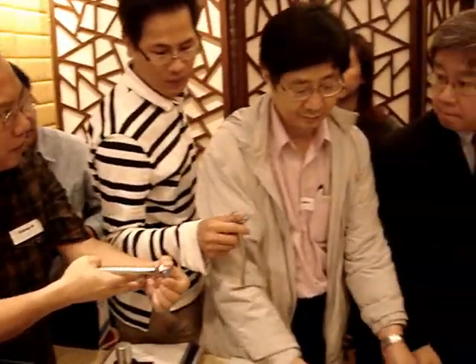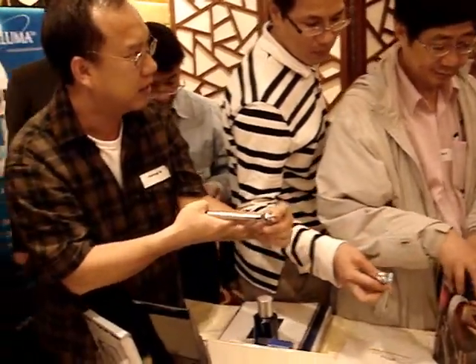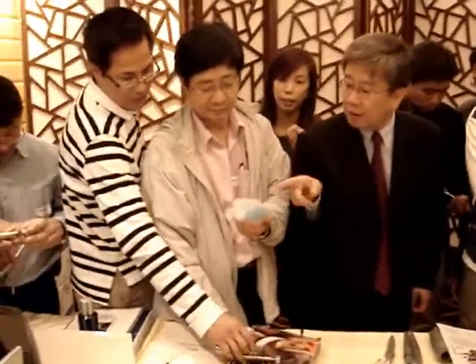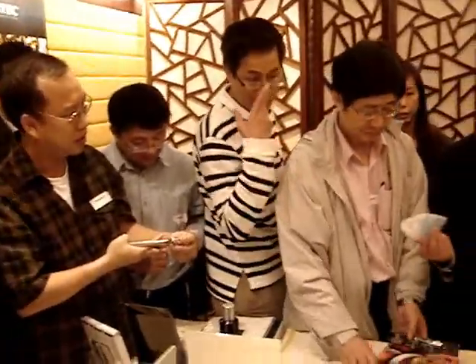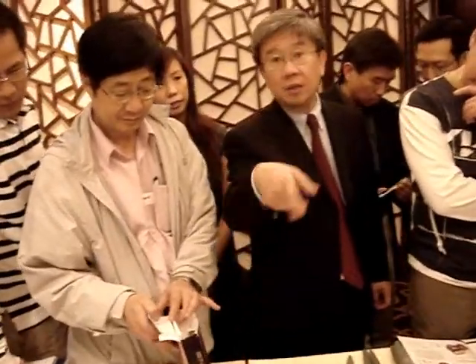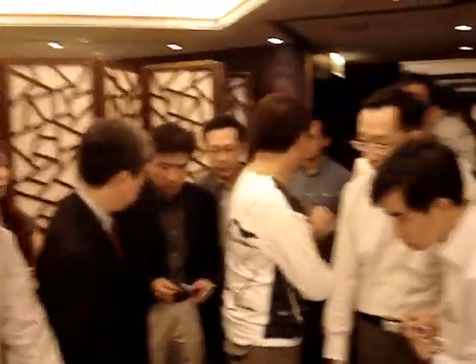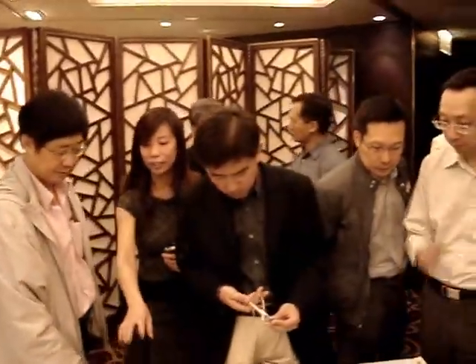Is this part autoclavable or changeable? Every time I try to autoclave it, it deforms, so they don't fit. It's cheap — you just buy the inserts. If you have the DVD, why don't you play it? Okay, we'll play the DVD. Okay doctor, we need to get started.